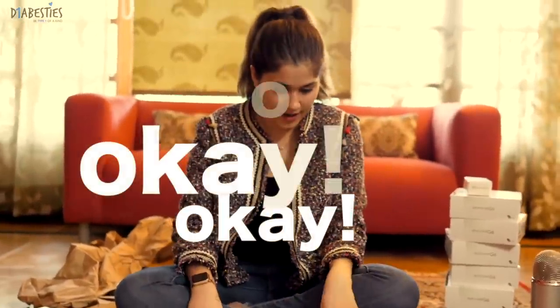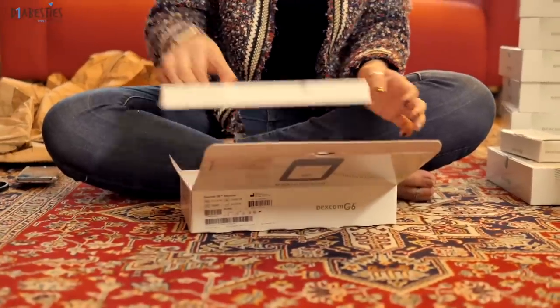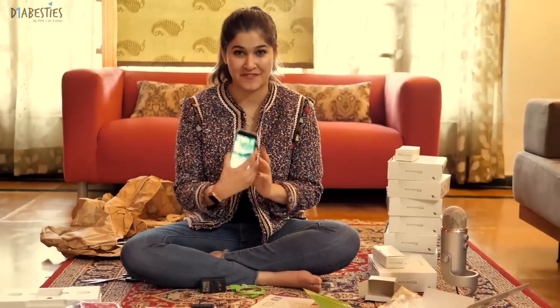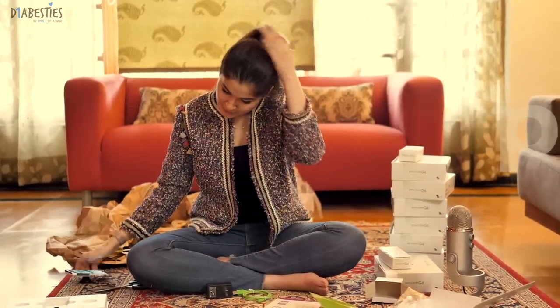Okay, let's try this now. I'm going to open this up and show you guys how it looks. Oh my goodness, this is more exciting than getting a new iPhone for me honestly. For all the type 1 diabetics out there, this is gold. It comes with covers — this is what it looks like when you open it up, very cool! Okay, I have to download the app first. I've just downloaded the Dexcom G6 app as well as the Clarity app, which sort of sends trends to your doctor and to your clinic. Now I'm going to be setting up the receiver.